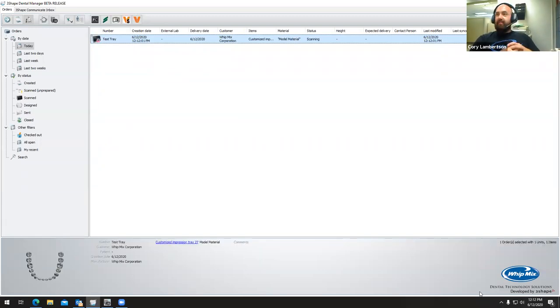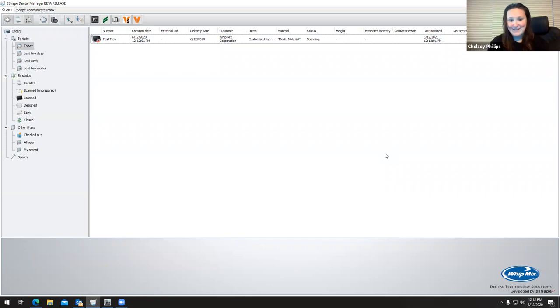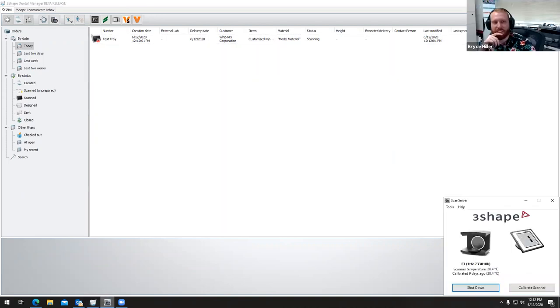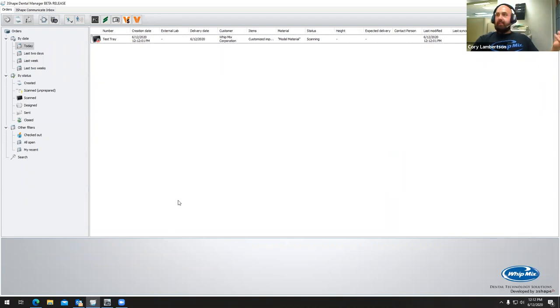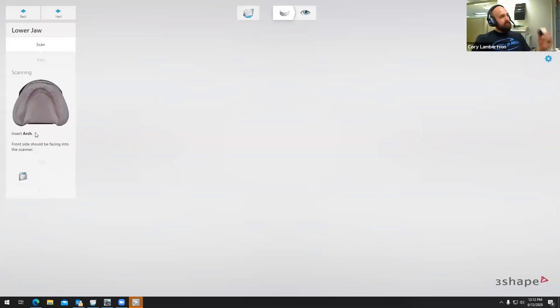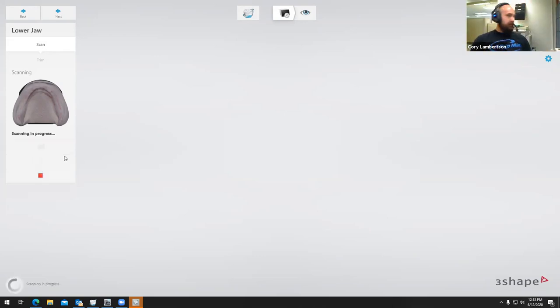The scan software should prompt. This is actually my first time using the Ferrari computer — she's fast! The actual software tells us what to do on the left-hand side. It says 'insert arch' — pretty self-explanatory — and it says the front side should be facing into the scanner. If you look at the scan plate itself, you have the long flat backside where you want to place the back of the model. Place it in and it is going to start scanning for us. If you have any questions, please feel free to ask at any time.